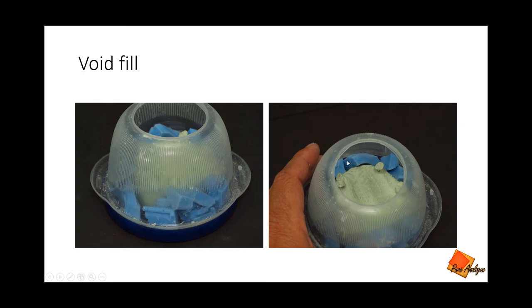So crumble it up. I try to keep it away from the teeth, but I fill that void in around the base and put a few pieces in the middle of the palate because the material will float a little when you pour the new material on top. You want to cover the teeth with an adequate amount of silicone, and the less you can use the better. That way you can stretch your materials and keep your cost down.